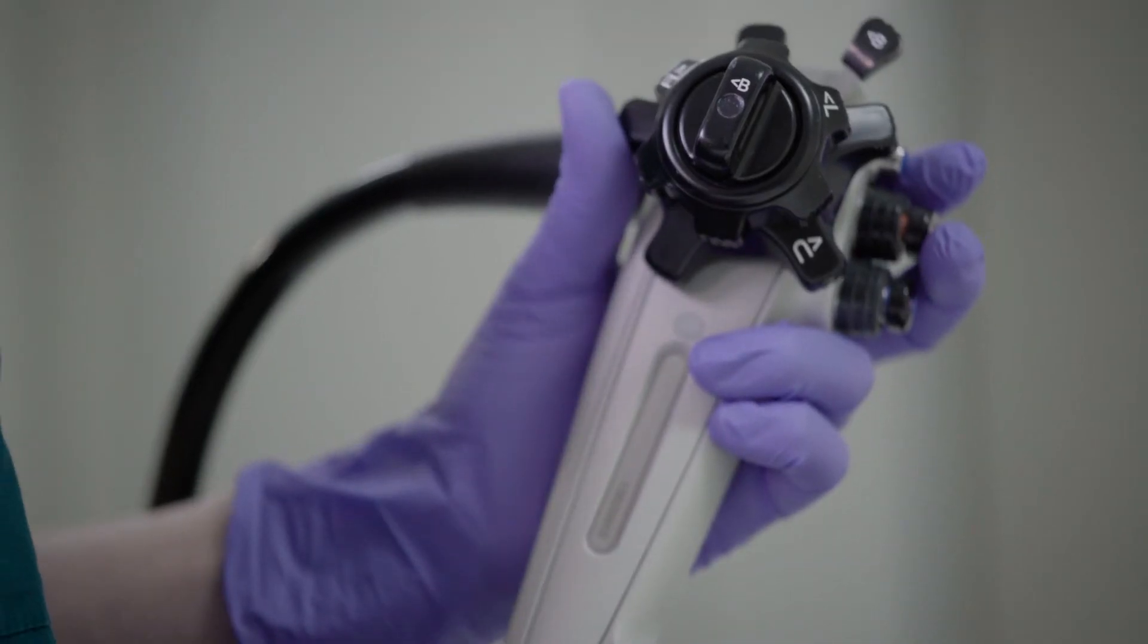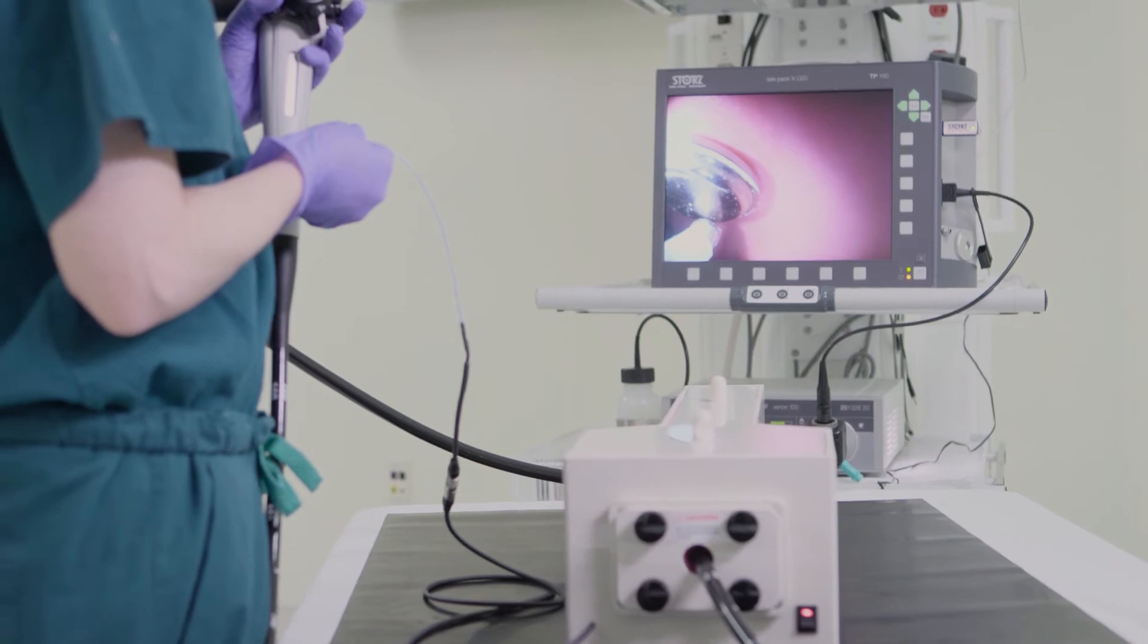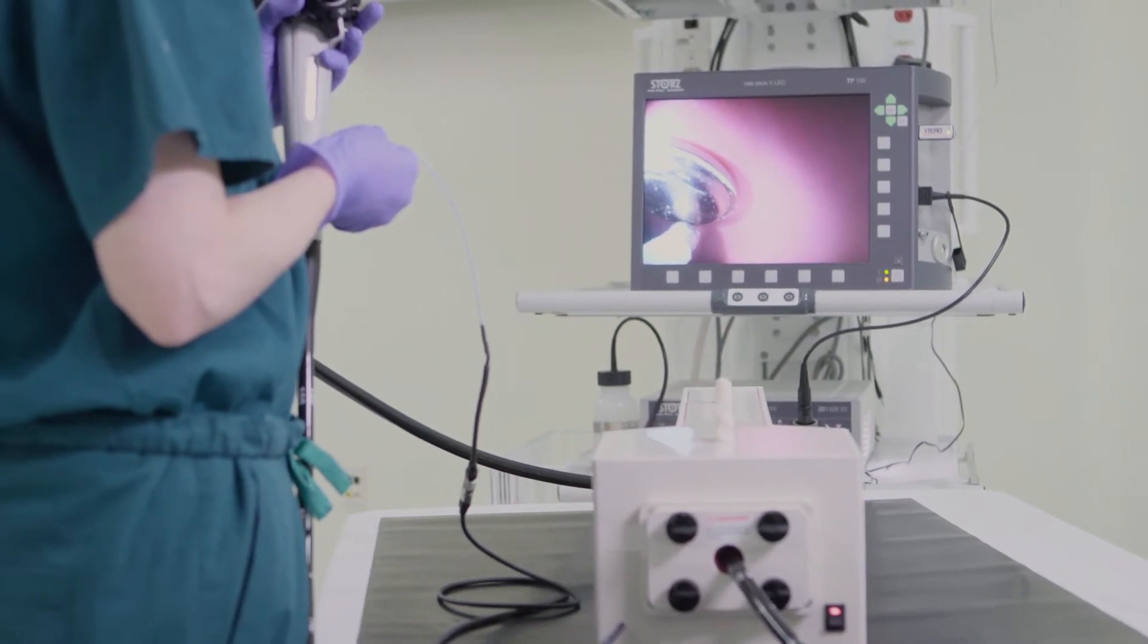Through the use of audible tones and the illuminated panel, the trainee receives feedback and measures progress towards successful skill development.